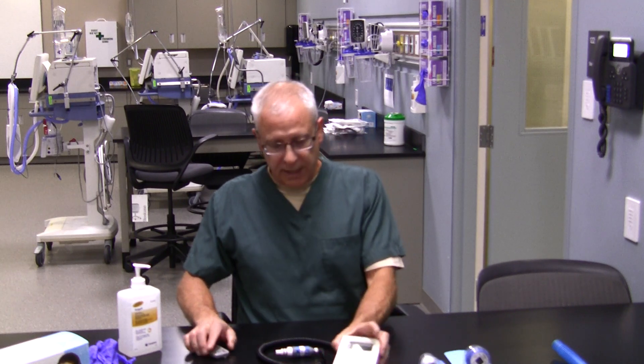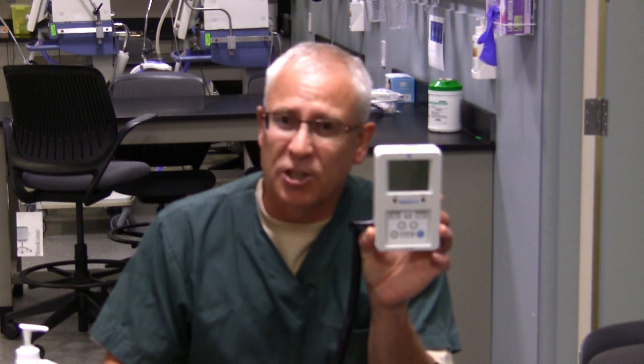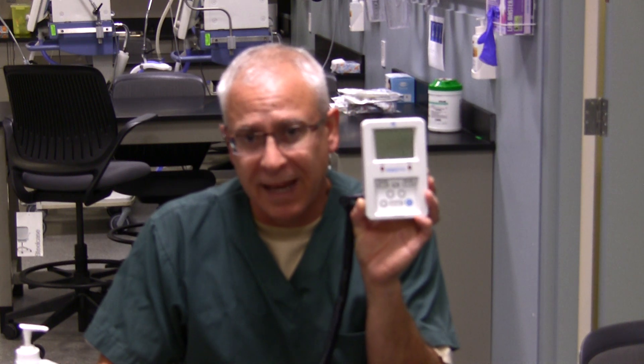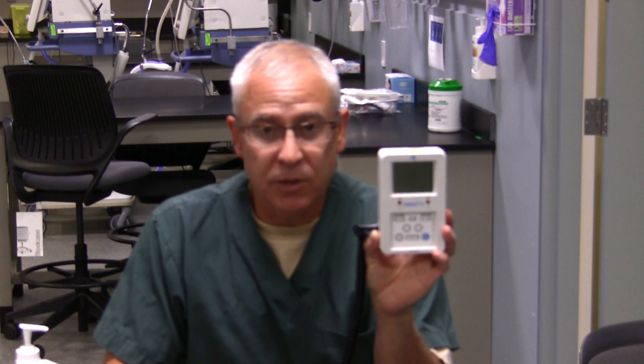I've got an oxygen monitor here to show you. There are a lot of different brands of oxygen monitors out there. Now, I mentioned oxygen monitor and oxygen analyzer — there is a difference, albeit we tend to use these devices interchangeably. What qualifies an oxygen monitor is that it has built-in alarms, allowing you to set alerts for high or low oxygen concentration. An oxygen analyzer doesn't — it simply measures the concentration and displays it.